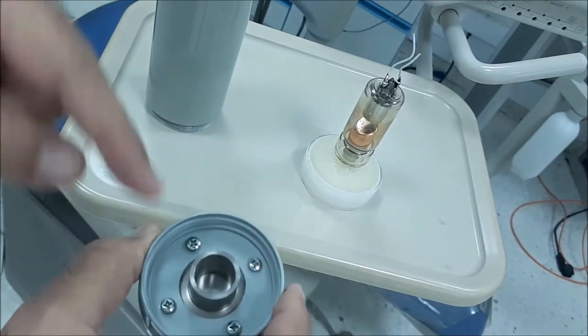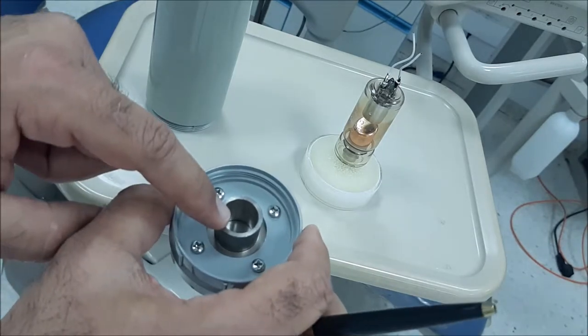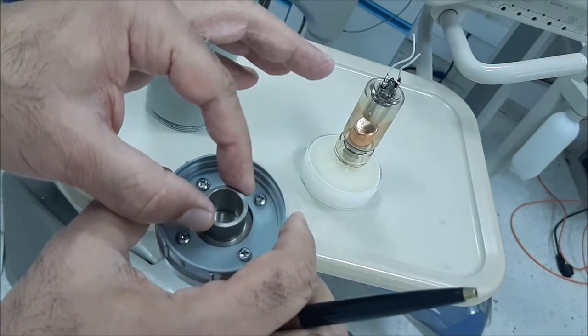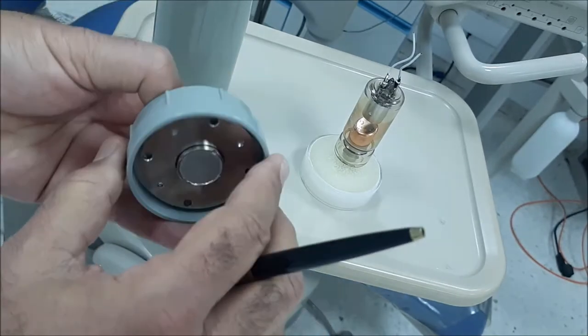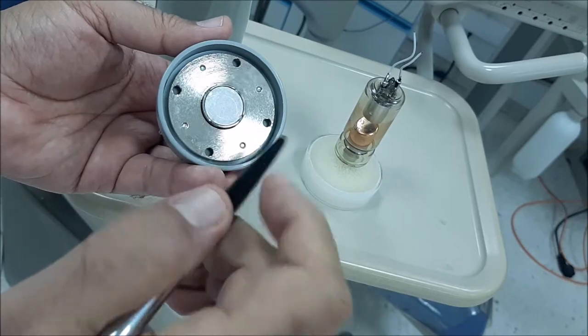Any more than the 6 cm is unnecessary exposure to the patient. So we need to cut all this unnecessary exposure, and this is the function of the collimator.